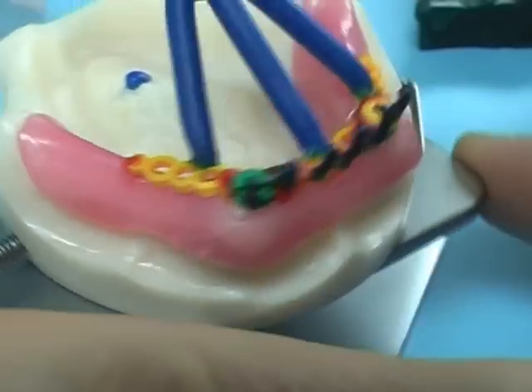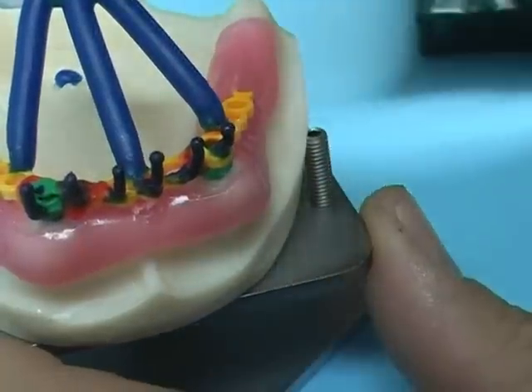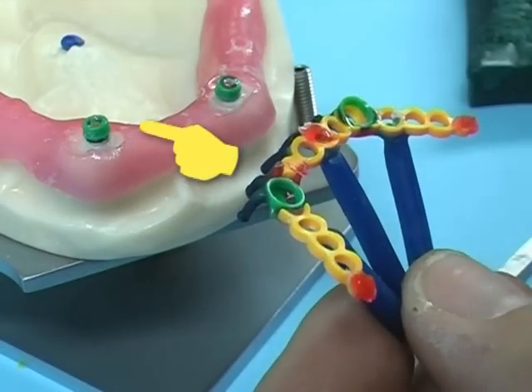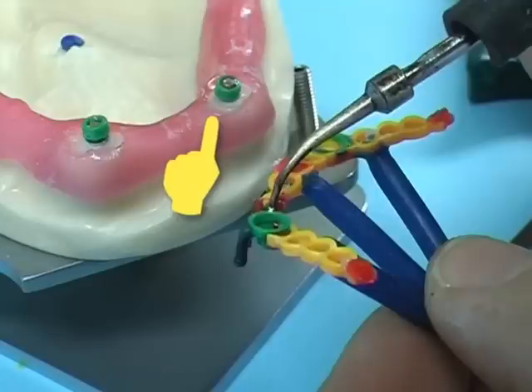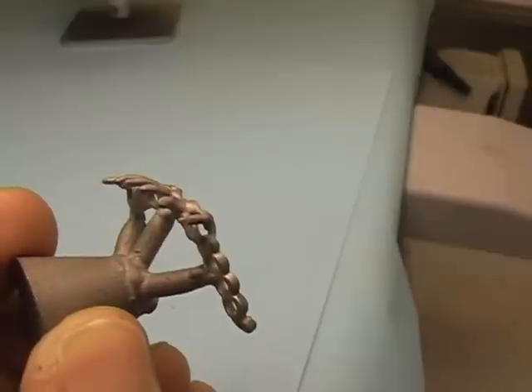Carefully check and add wax where any area needs to be reinforced. Be sure the positioning rings are not left inside the castable boxes. Using balanced expansion investments, measurements are usually respected.